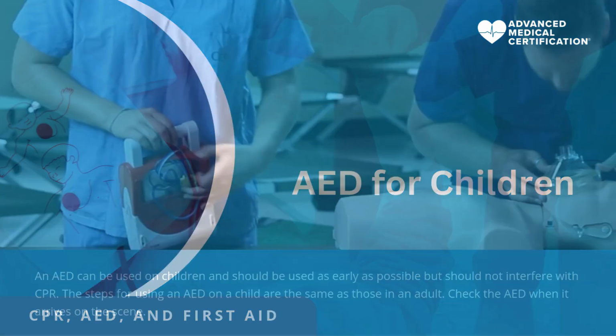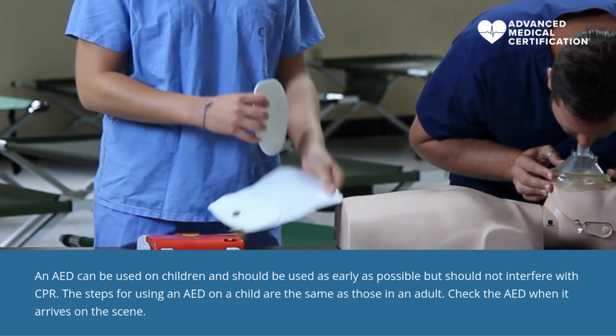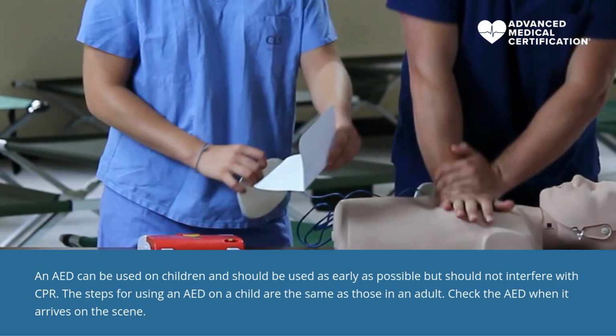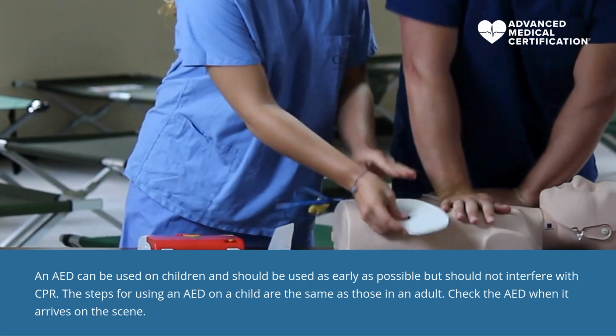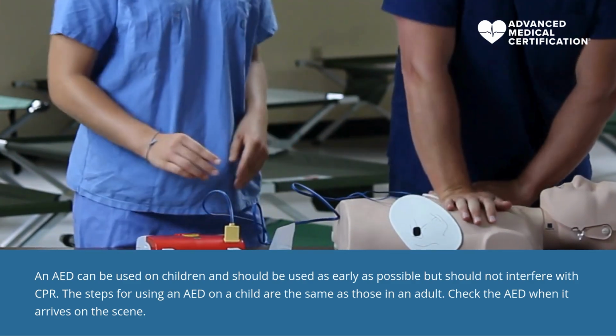AED for children. An AED can be used on children and should be used as early as possible, but should not interfere with CPR. The steps for using an AED on a child are the same as those in an adult. Check the AED when it arrives on the scene.